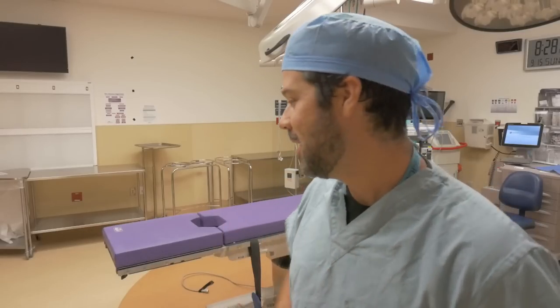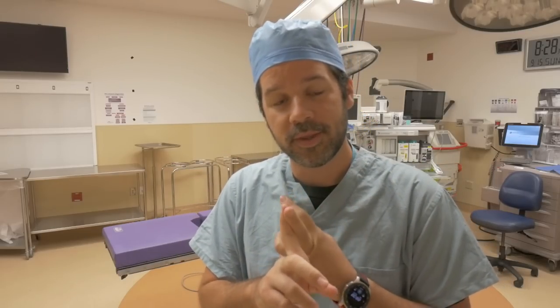Hey everybody, welcome back to another surgical tech tips. We are back in the OR and I wanted to do a video on this bad boy right here — our OR table. I haven't really gotten to talk about the OR table, so I thought it would be good to go through some positioning and take you through the controller and the different options and safety aspects.